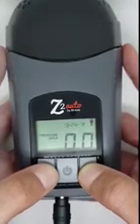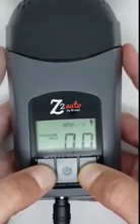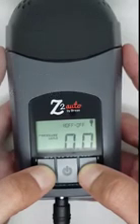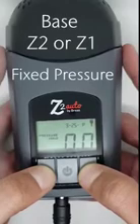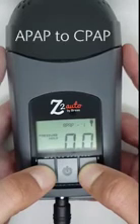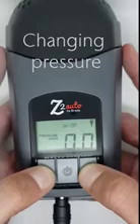In this video, I will be showing you how to change the clinical settings and the patient comfort settings on a Z1 or Z2 device. The Z1 and Z2 auto CPAP can be set to either auto adjusting or fixed pressure mode, and a base Z1 or Z2 CPAP can only be set to fixed pressure. The clinical settings include changing from APAP to CPAP mode on the auto device and changing the pressure on the auto or fixed pressure CPAP.